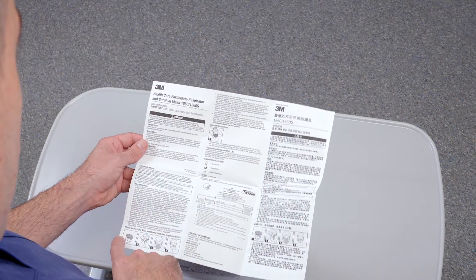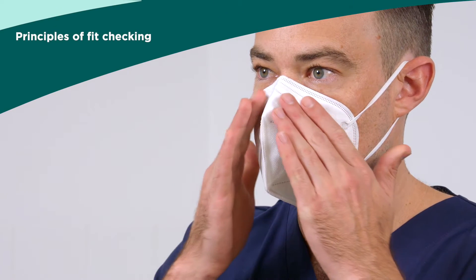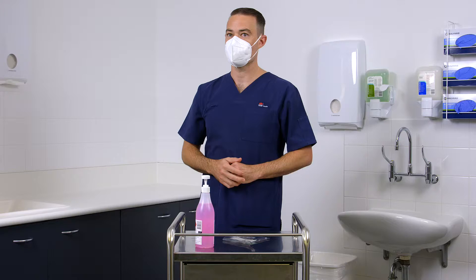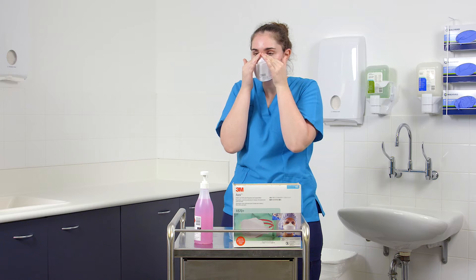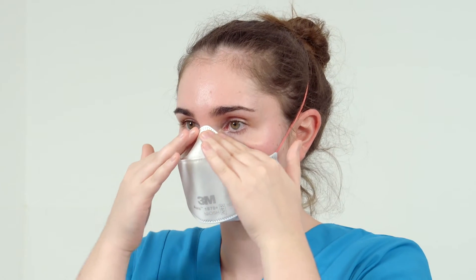Follow the manufacturer's instructions for donning the respirators. The fit check includes both positive and negative pressure seal checks and should be performed according to the manufacturer's instructions for each type of respirator. Perform a fit check every time you don a respirator and before entering an airborne precautions room. Check the positive pressure seal by exhaling and the negative pressure seal by inhaling while wearing the respirator.